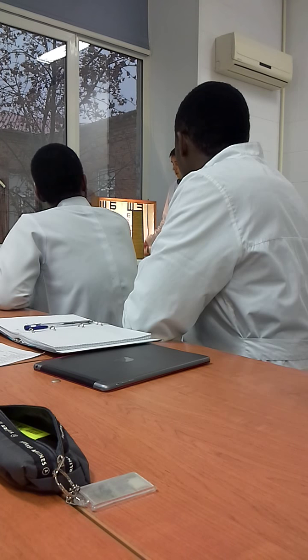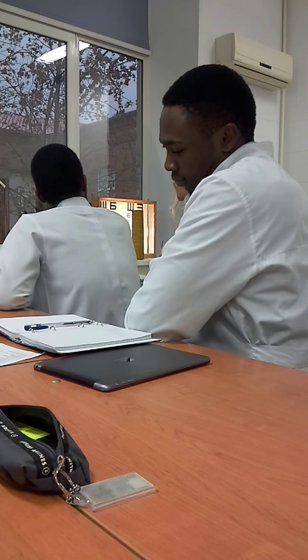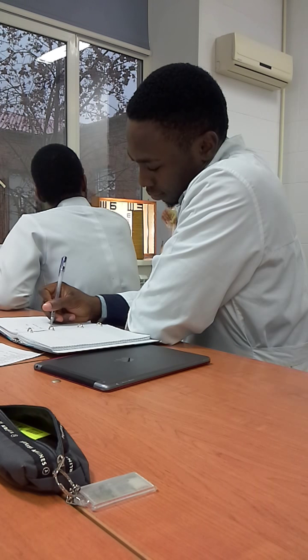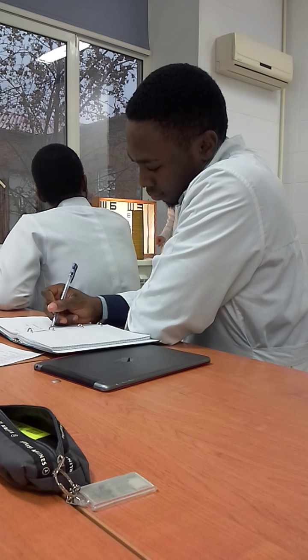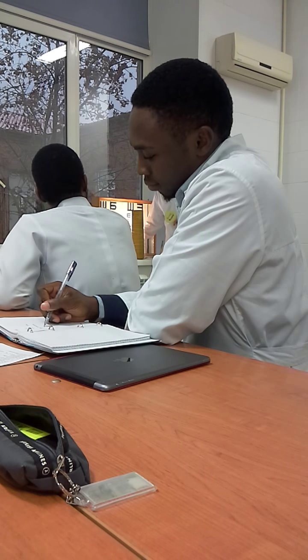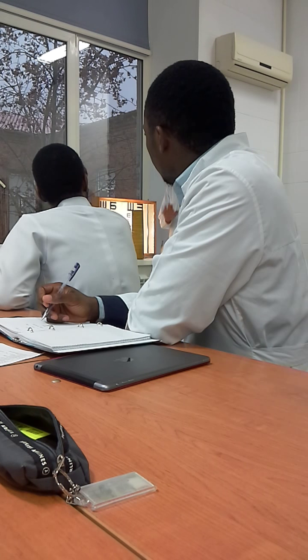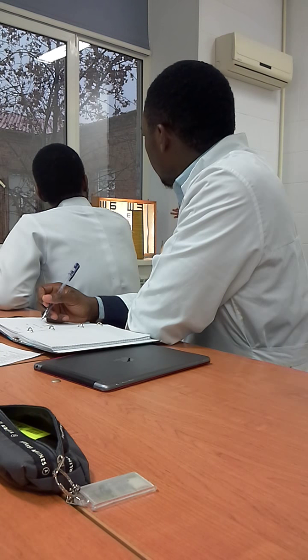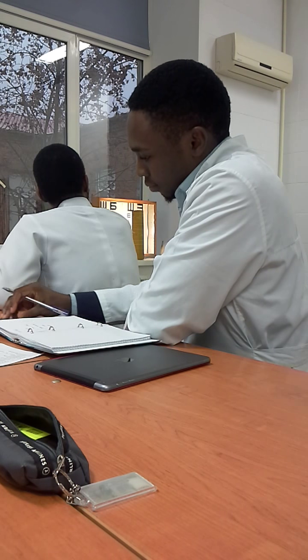In lines from third to sixth, it is possible to make one mistake — we use that line. Two mistakes? No, we use the previous line. In lines from seventh to tenth, it is possible to make two mistakes. So if your patient reads the tenth line even with two mistakes, his visual acuity is still 1 — normal. Not full, but normal. Two mistakes on the tenth line is acceptable.